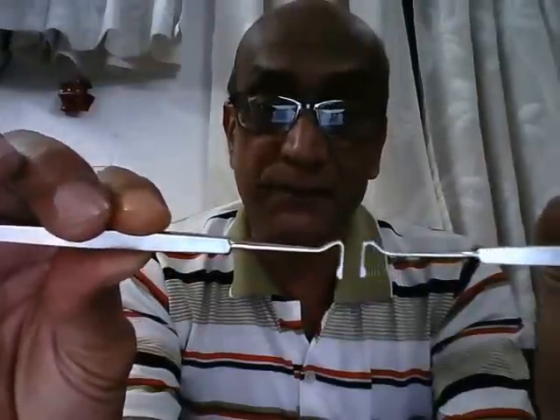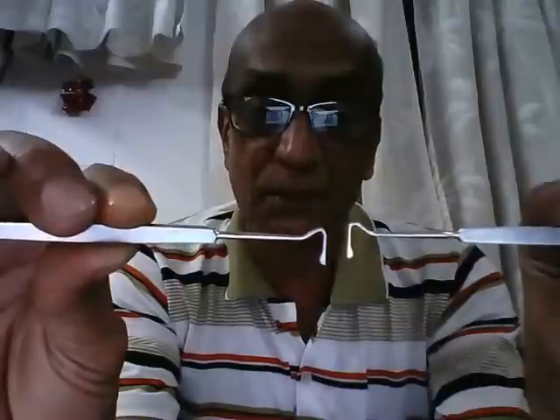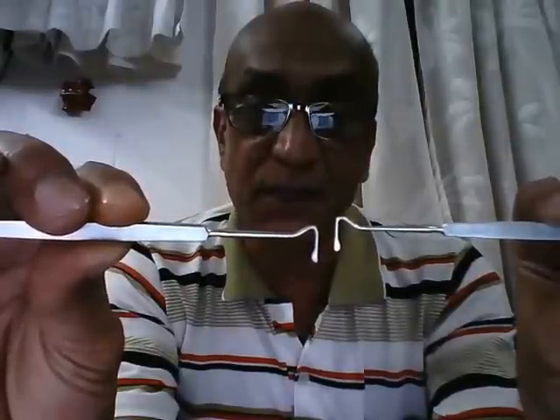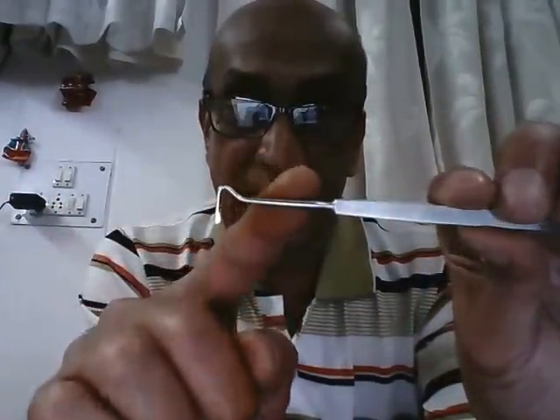The next instrument is called the strabismus hook, muscle hook, or squint hook. As the term implies, it is used to hook up one of the extraocular muscles during squint surgery. Looking at the instrument closely, the functional end has a double angulation, which is the actual hook responsible for hooking up the extraocular muscle. The second notable feature is the tip, which is flattened sideways.